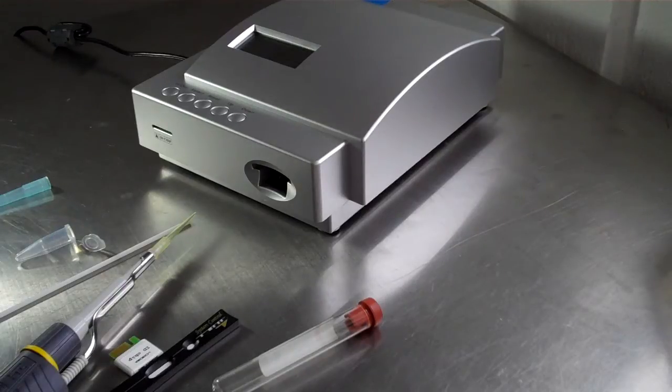I do it home and it takes 15 minutes, and you get the results in nanograms exactly like you would at any vet or any laboratory, and you don't have to send out. 15 minutes and you're done.